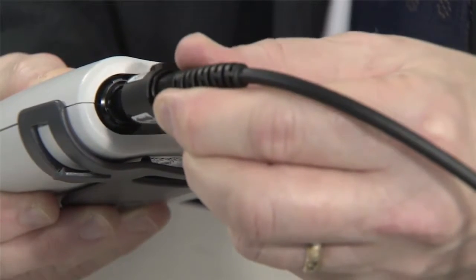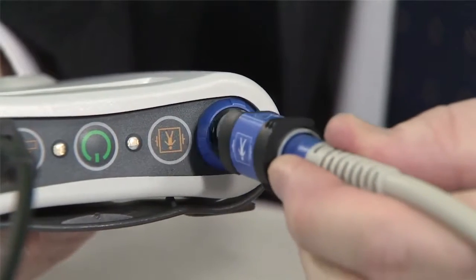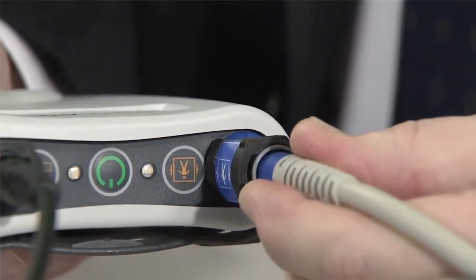Once you've prepared your patient, taking an ECG is really simple. To do this, connect the black USB cable to the black port on the top of the ECG. Now this can be done if the black arrow is on the top of the cable and the collar on the inside of the cable points inwards. It goes into the port like that. The same is true of the patient cable. This time there's a white arrow on top of the cable, and again the collar on the inside of the cable points inwards. Those cables won't fit to the ECG any other way.